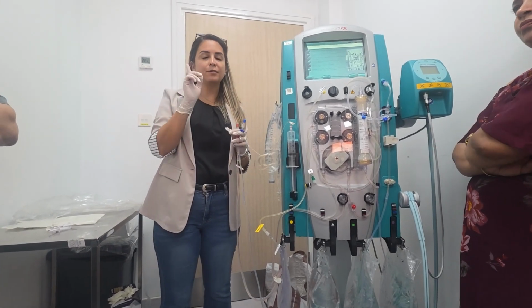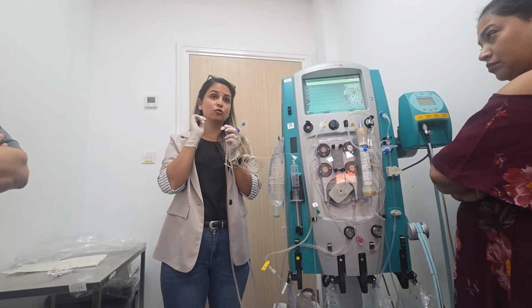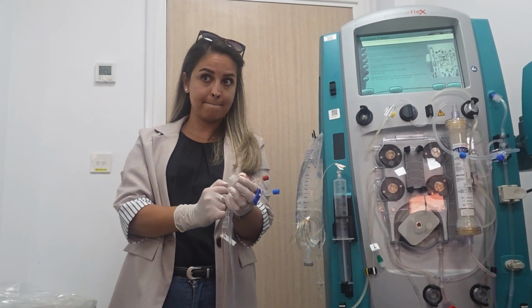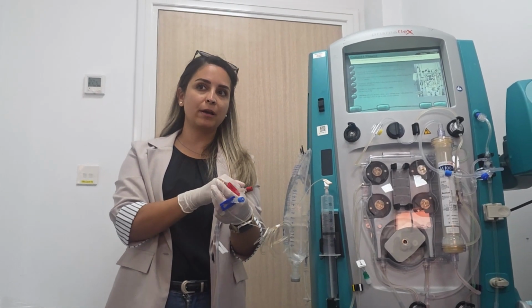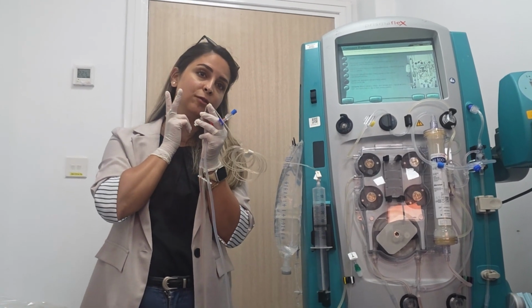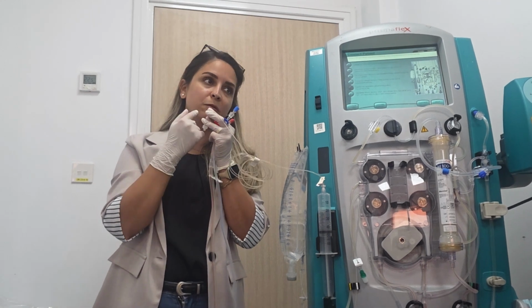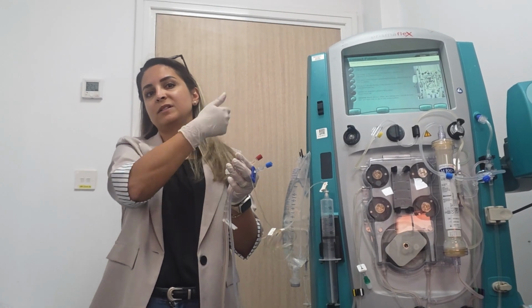Another important thing: if you connect this one to the central line, don't take ABGs from the central line, because you are giving calcium, so it will not be accurate. So take it from the arterial line. Even another port of the central line will have some. Don't take it. Take it from the arterial line. Same if I connect this one to the triple lumen of the catheter, and this line also has three-way connections. Also, don't take blood samples from the same line which is connected to calcium. Take it from the arterial line, or if you have a central line far away, take it from the central line.